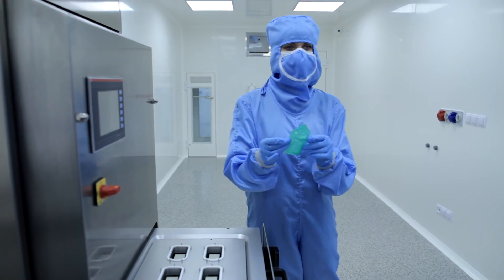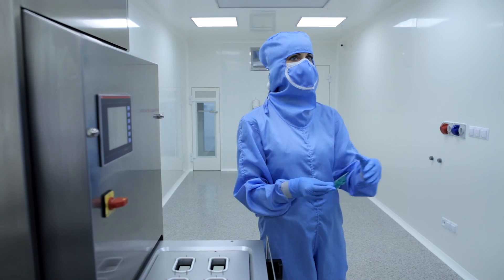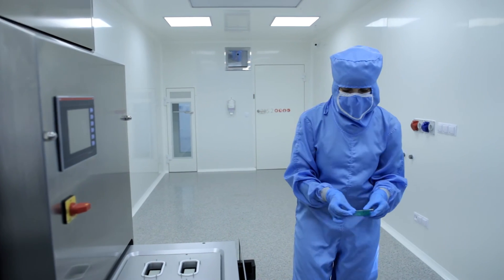So after that, it is sealed. So it's going for the waiting area, for the next process.